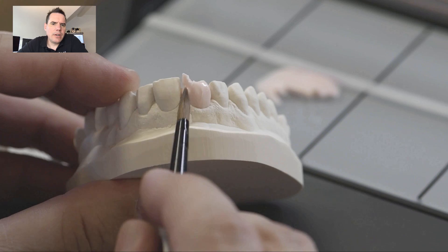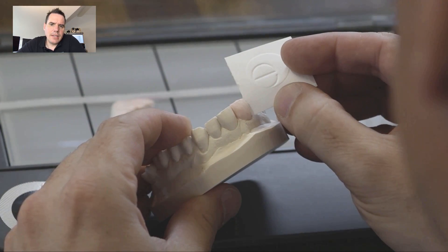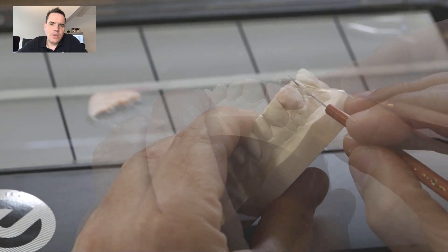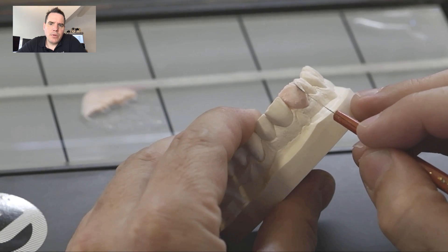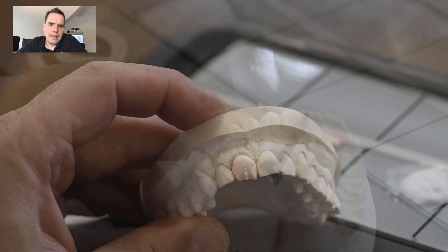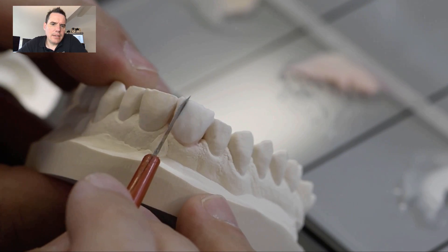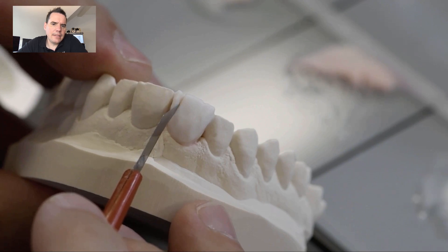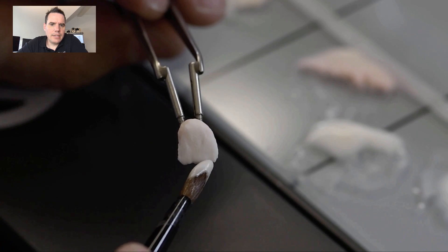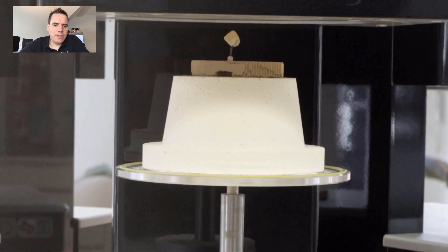You don't need to stain your framework at all. You also don't have to use any opaceous dentin — that's not necessary with Prime. You just start straight with the dentin. Do your cutback as per normal. I don't think you should change your layering style. Add some mammelons, enamels. Here we are imitating a bit of a crack that this case has. Add a halo to it, and then pop it in the furnace and fire it.